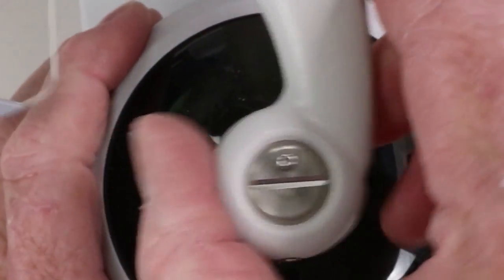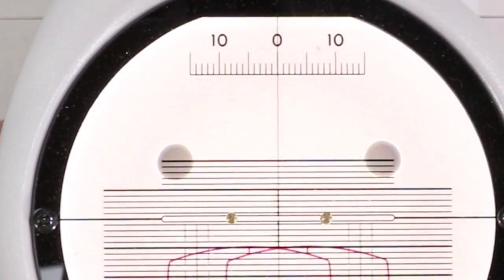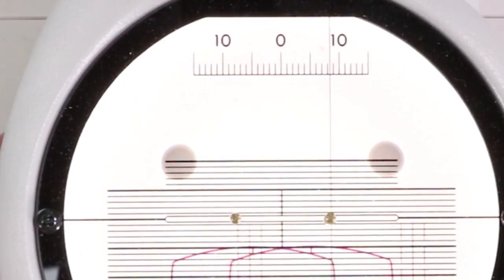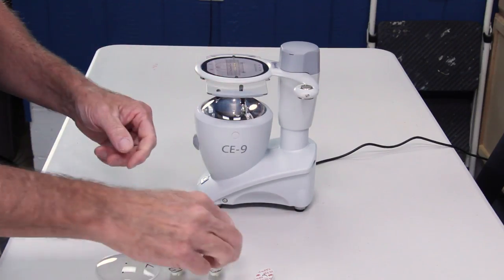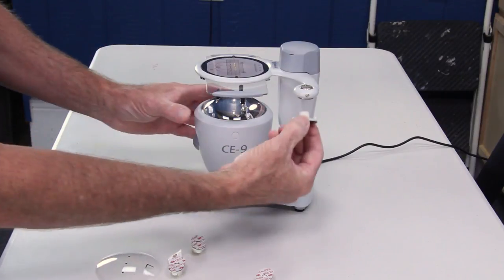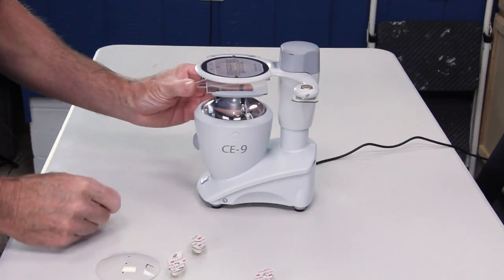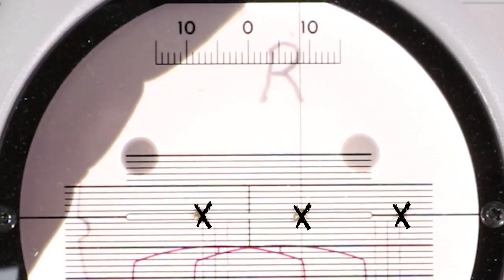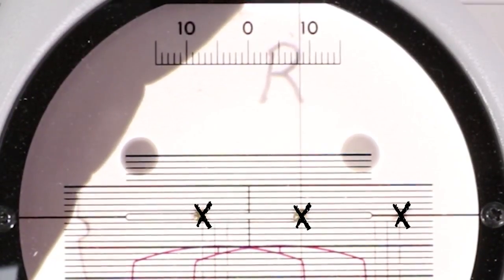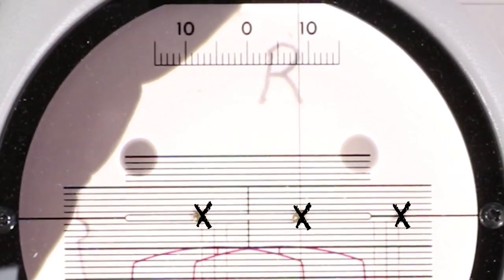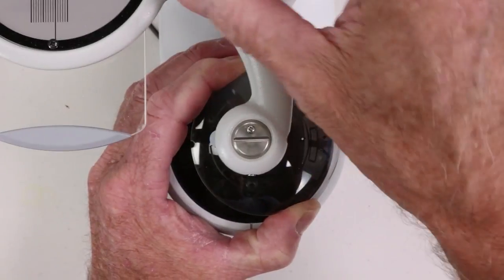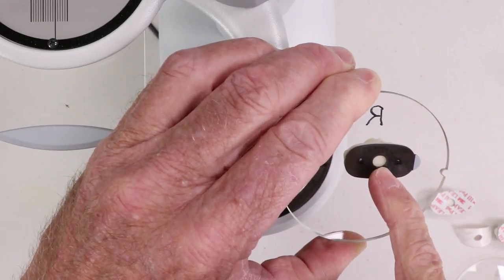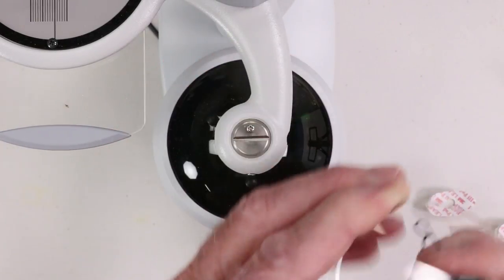Let's see what that would look like in the blocker. For example two, I have eight and a half millimeters of decentration. That would be zero, that would be five, six, seven, eight and a half. Load up a block. Grab my right lens. De-center that OC eight and a half over. The two outer dots, I can use them. It's a good reference point. It's a spherical prescription so they aren't necessary but it's always good to keep things in line. Holding that, stick that block on. Sure enough, there would be the opening of my frame. There's my OC shifted nasally in my right.